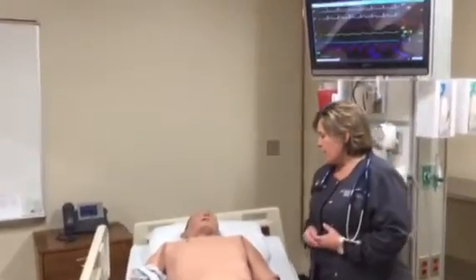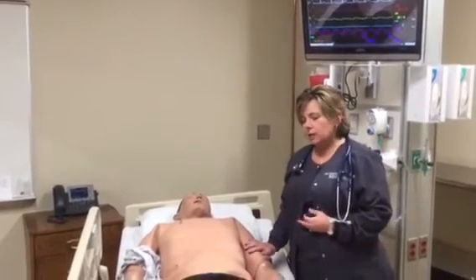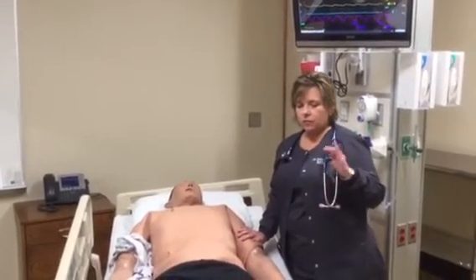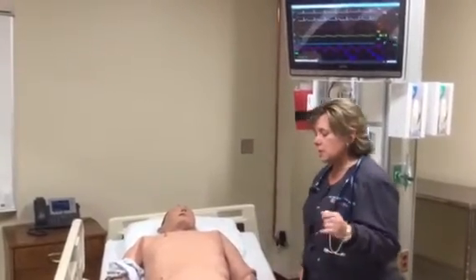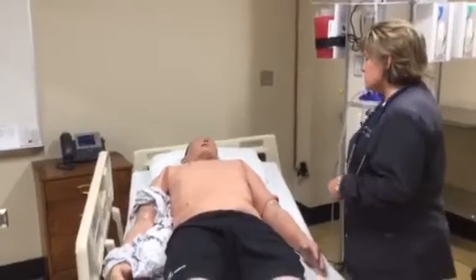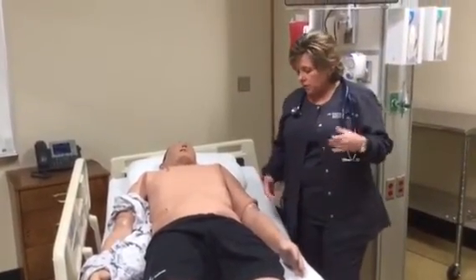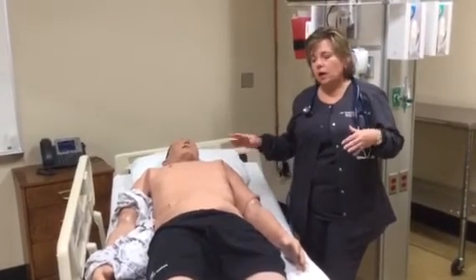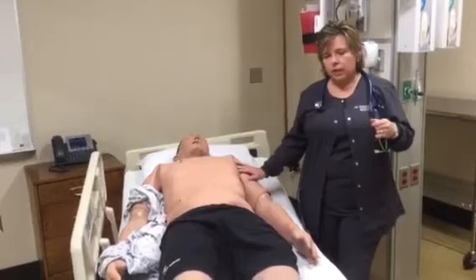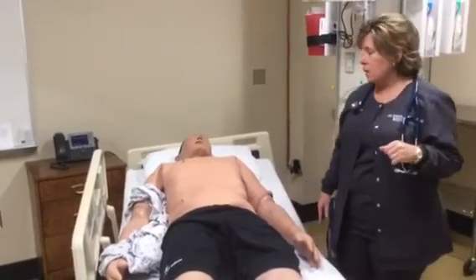Istan can also have a trach done. He can have a chest tube in. He can have issues with his lower extremities. He can actually lose one of his lower extremities for an amputation. So lots of different things that can happen. We put makeup on them to make it a little bit more real for any types of injuries or surgeries and that type of thing.